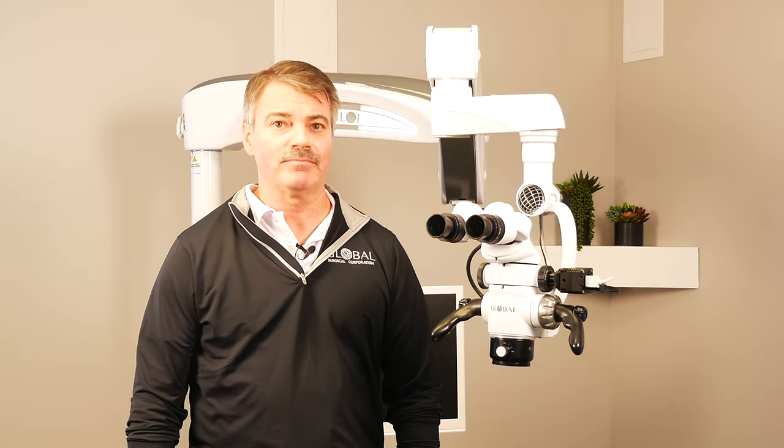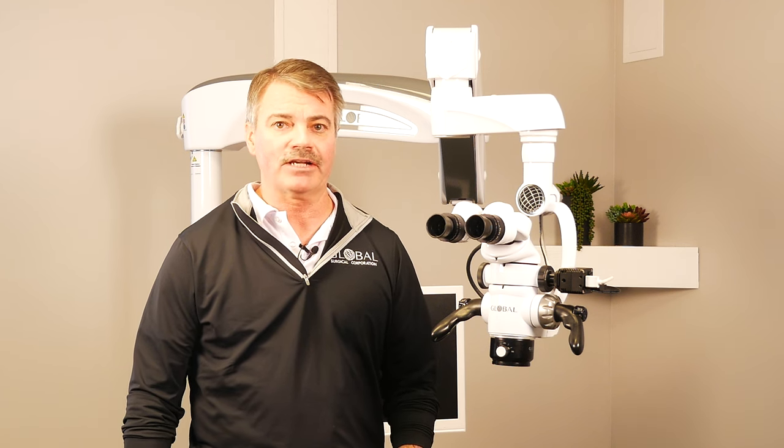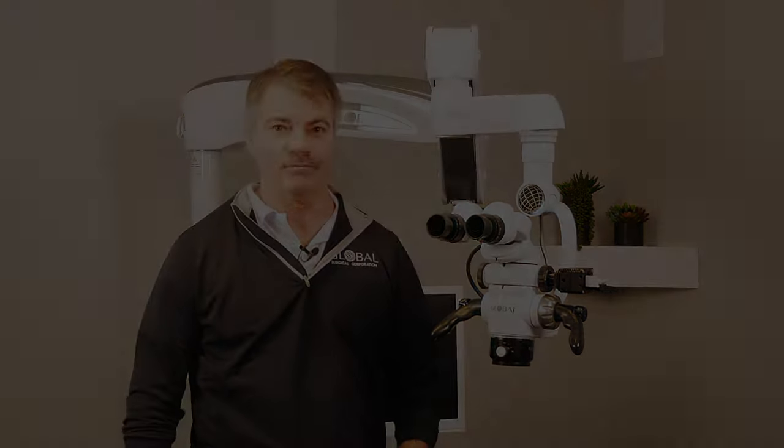One of the major benefits of using the microscope in dentistry is the increased magnification. With the microscope, you have the option of going from a low of 2x all the way up to a high of nearly 20x magnification.